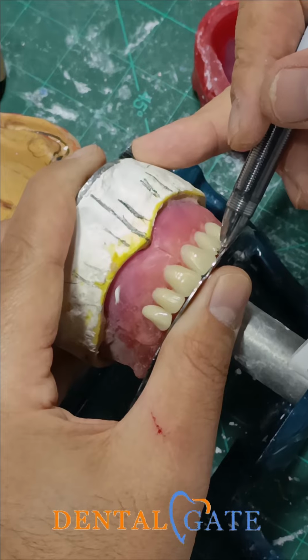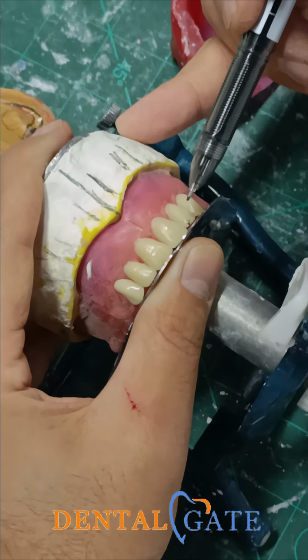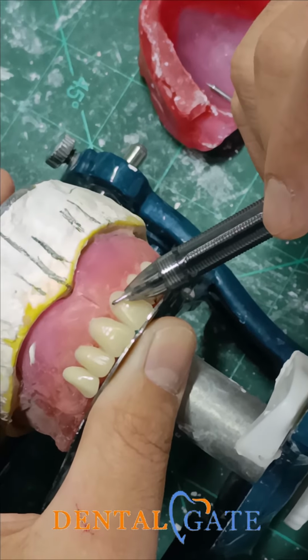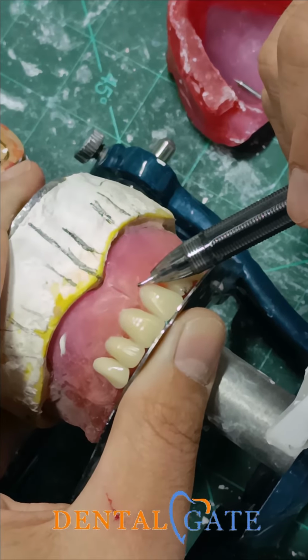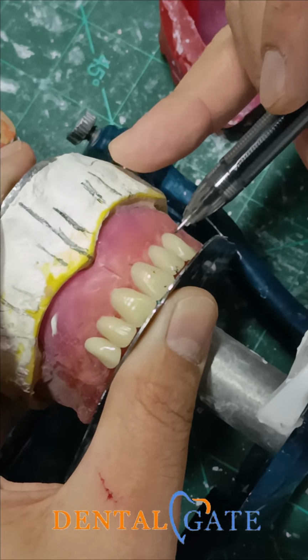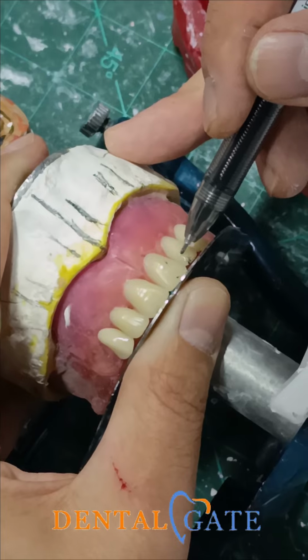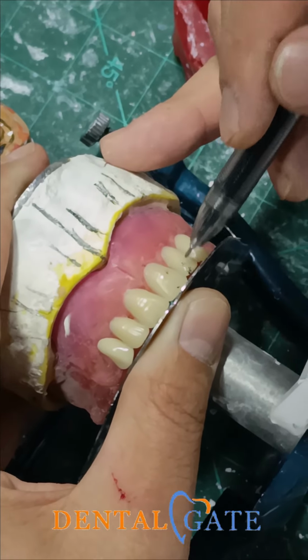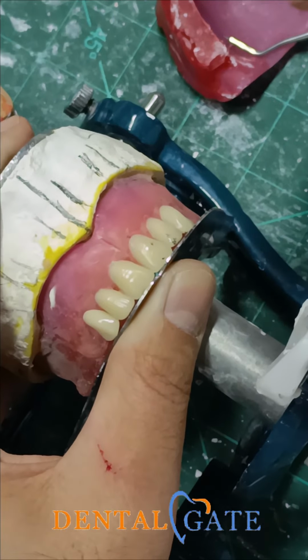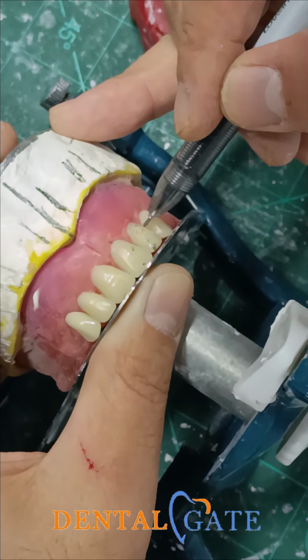The lateral incisor should not touch the table, okay? The lateral incisor does not touch the table. But please preserve the contact area. If you have the contact area, you have the central on the table, okay? If you follow the contact area, it's automatically produced, there is no attaching to the table, okay? So, we have a contact area with the lateral incisor, and we don't have any contact area here, okay? So, the mandatory one, this portion, it should be protruded, okay?